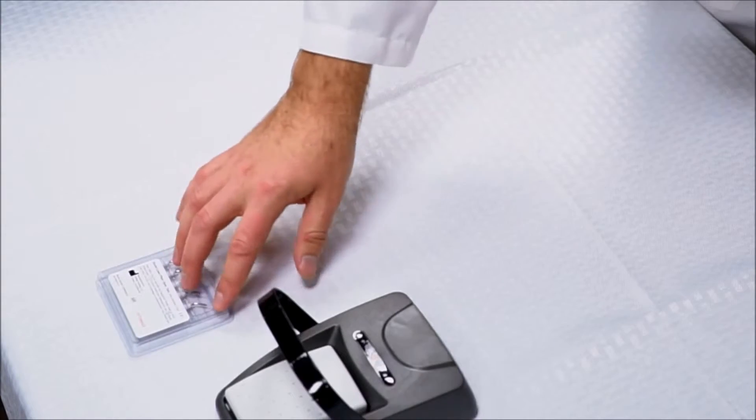Next, you have a five pack of cutting tips. These are the disposable laser tips to be used for each patient one-time use.